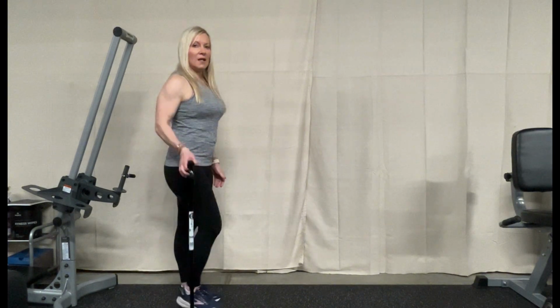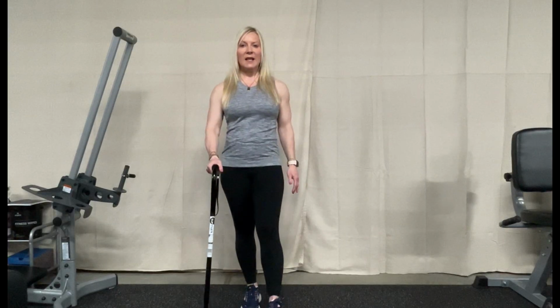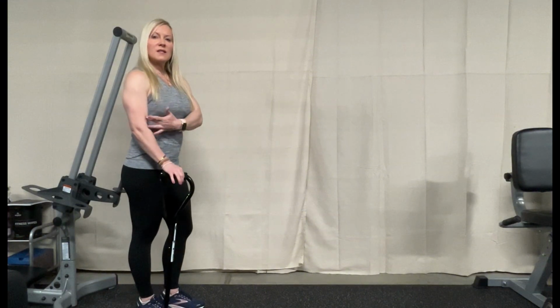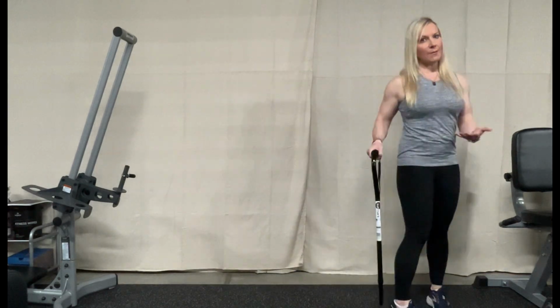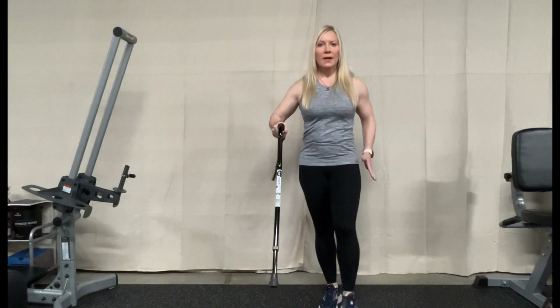When you use a cane, you always want it in the opposite hand of where your injury is. So here, my cane is in my right hand, so my left leg would be the problem area. Whenever you walk, you advance the cane and the foot, and you step. From a side view, again, nice relaxed shoulder with a very small bend in the elbow, the cane and the foot, and you step up to it. Or you can step through. We want to always alternate. It's that reciprocal gait pattern.